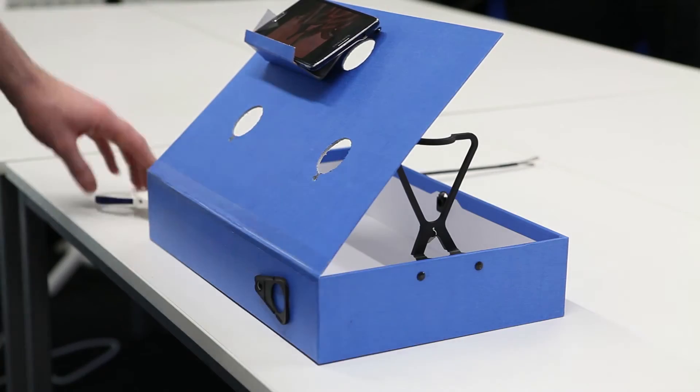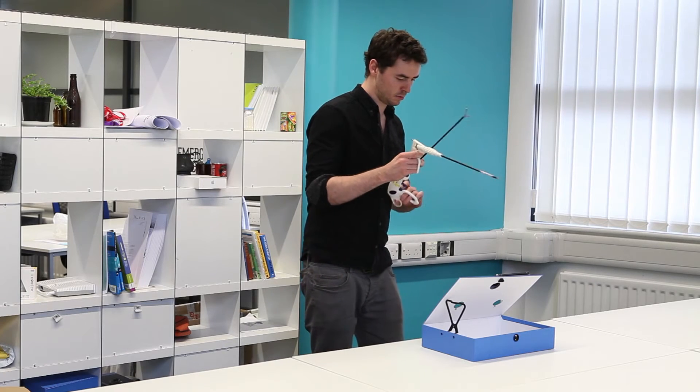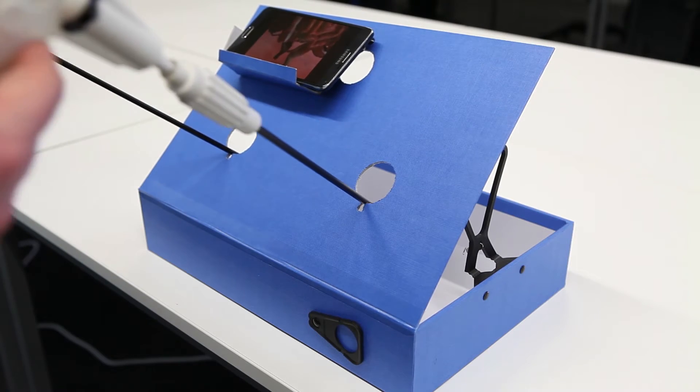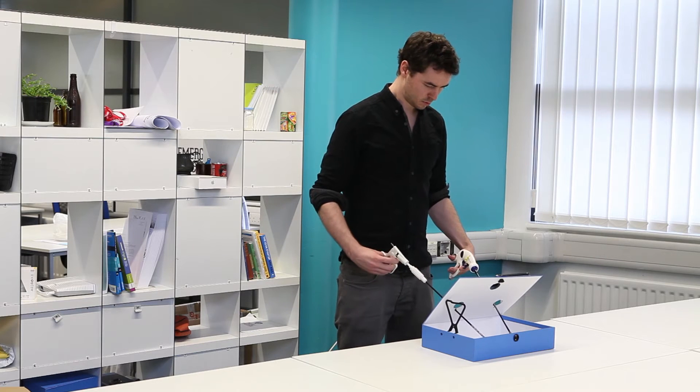Through using the Lapkit, students and trainees can practice common procedures and receive feedback on their progress by an accompanying mobile application.